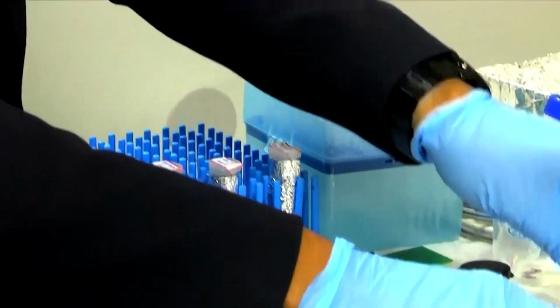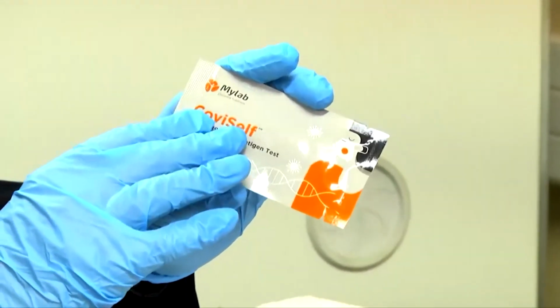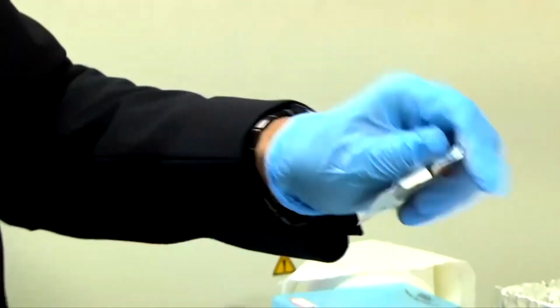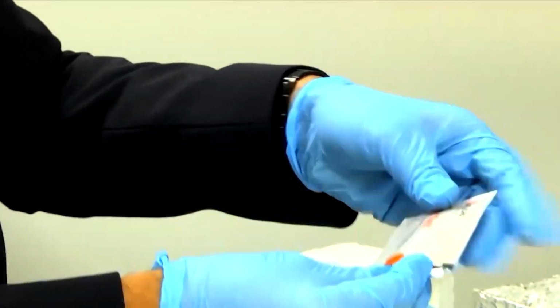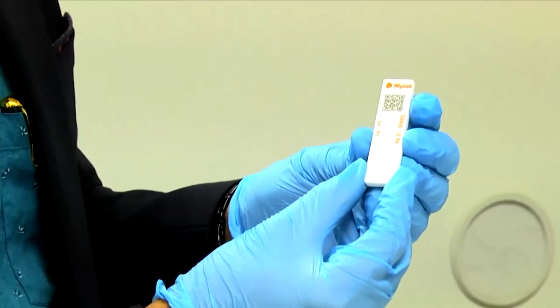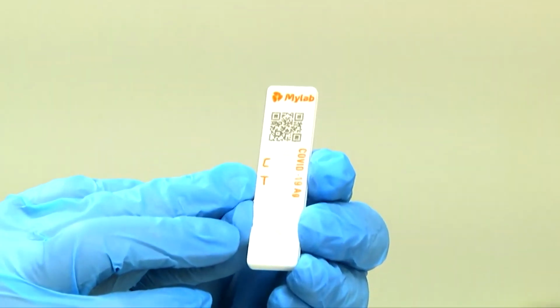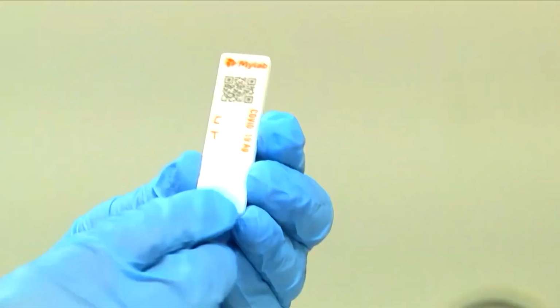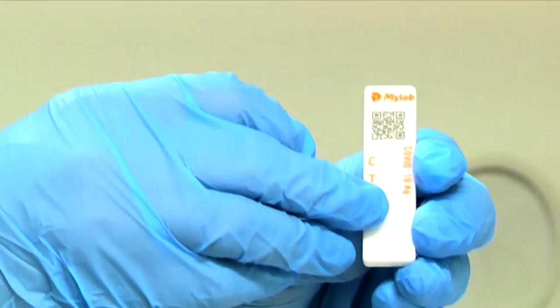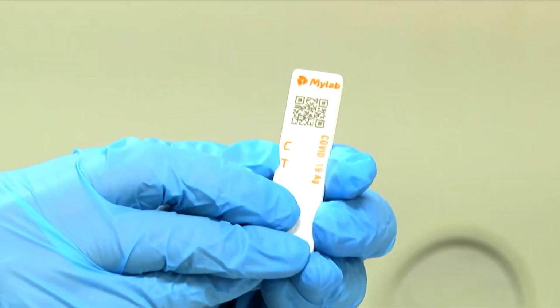Another commercially available device, very recent and very important, is the COVID self-test that can detect COVID. I think I taught you colorimetric sensors also, right? We bought this one from the market and, as I told you, you can design similar things. I taught you this kind of colorimetric sensor, like the pregnancy test kit. You drop the sample here, then this is a microfluidic, paper based device. It will flow through this paper. Then see, there are 2 channels, one is test, another is control.